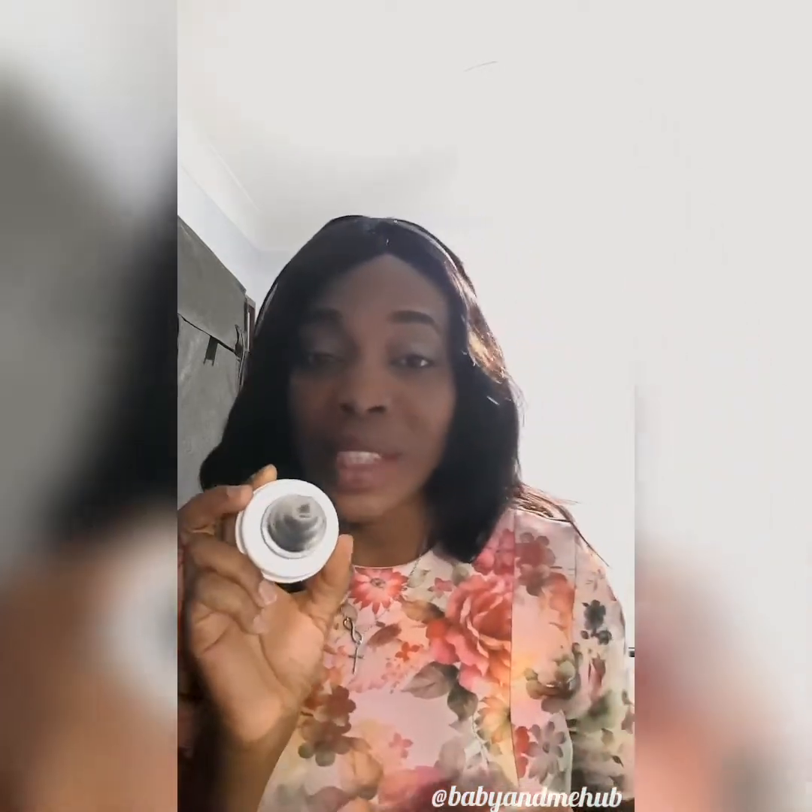So if you are going to wear this correctly — you are about to breastfeed your baby, you have your nursing pillow or whatever props to make your baby comfortable, and you have your nipple shield — the first thing you want to do is make sure that your hands are clean to observe proper hygiene, and of course make sure the shield is clean too.